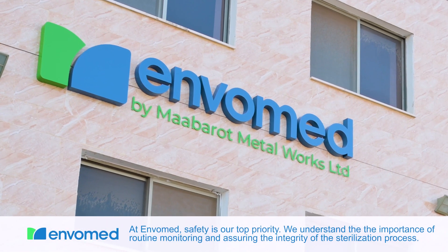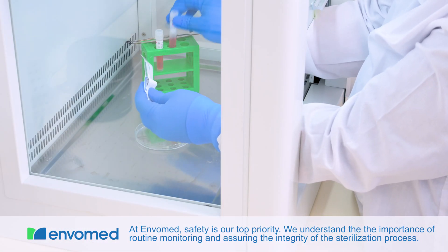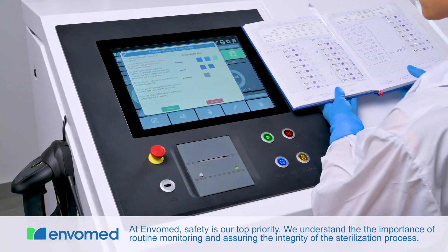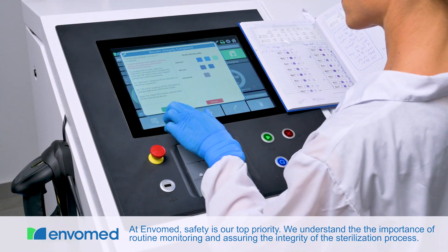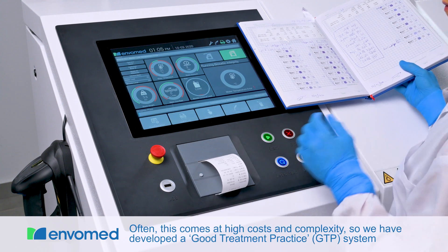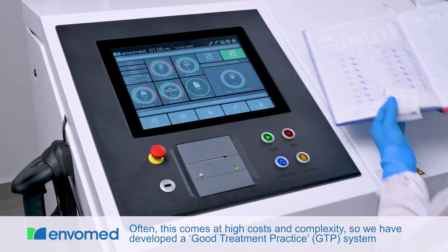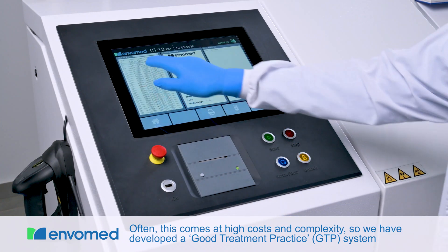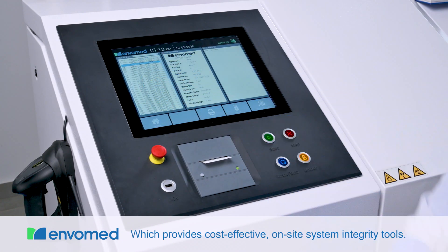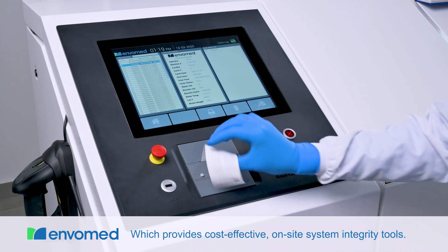At Envomed, safety is our top priority. We understand the importance of routine monitoring and assuring the integrity of the sterilization process. Often this comes at high costs and complexity, so we have developed a Good Treatment Practice GTP system which provides cost-effective on-site system integrity tools.